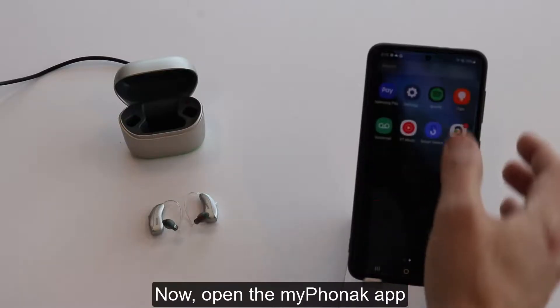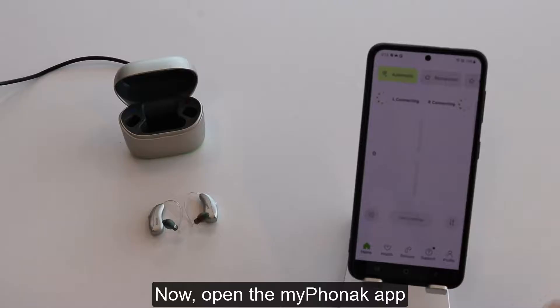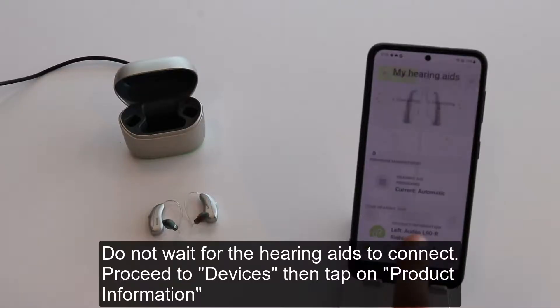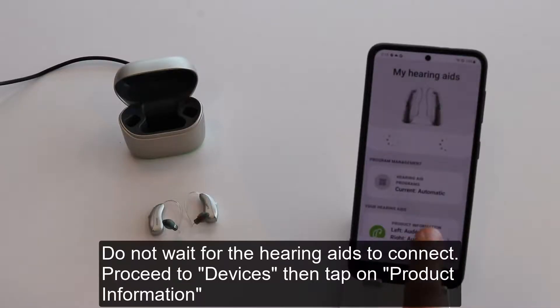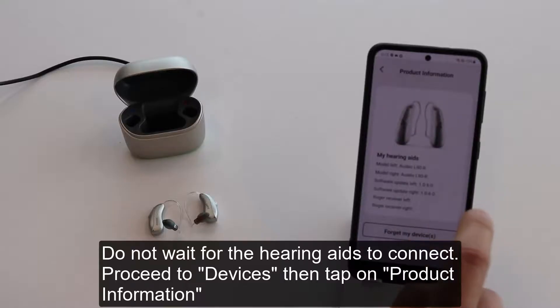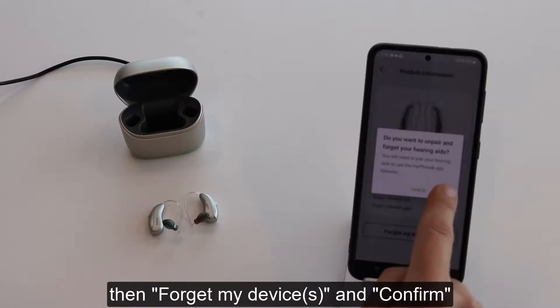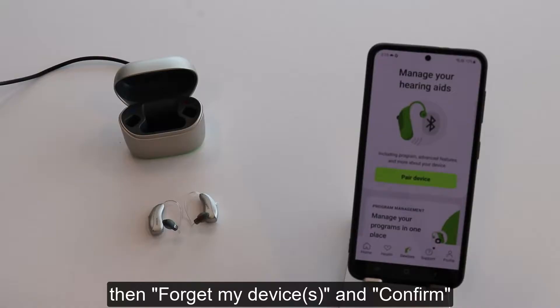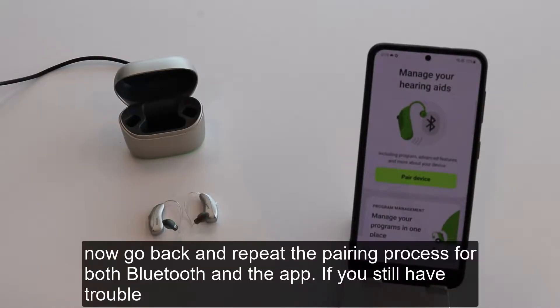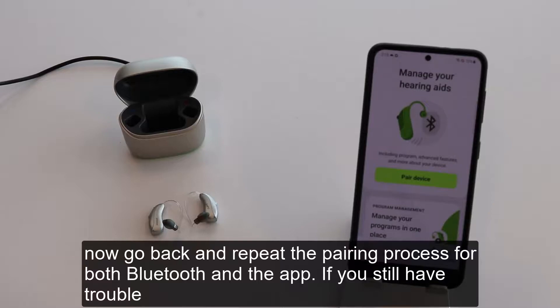Now, open the My Phonak app. Do not wait for the hearing aids to connect. Proceed to Devices, then tap on Product Information, then Forget My Devices, and Confirm. Now go back and repeat the pairing process for both Bluetooth and the app.